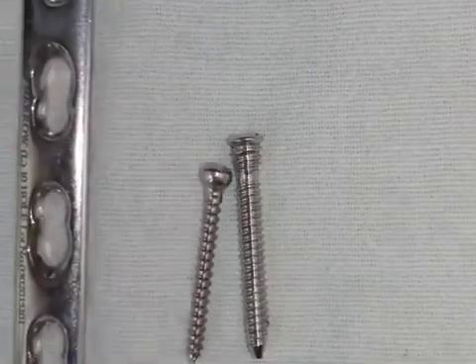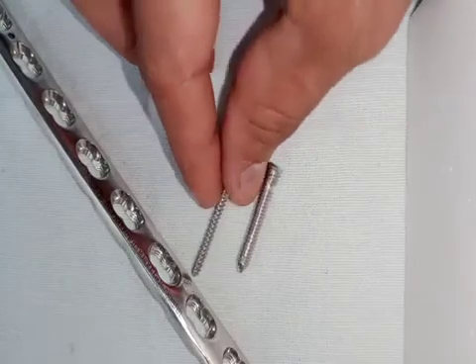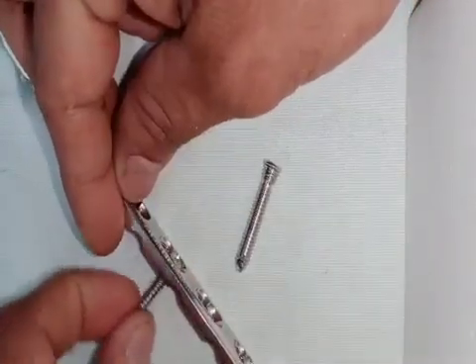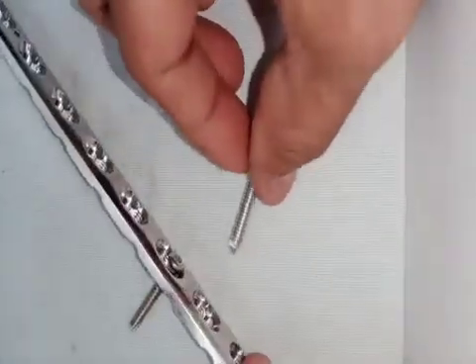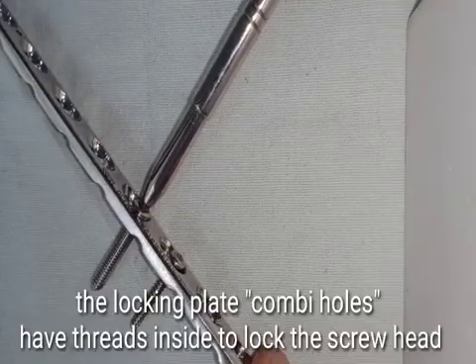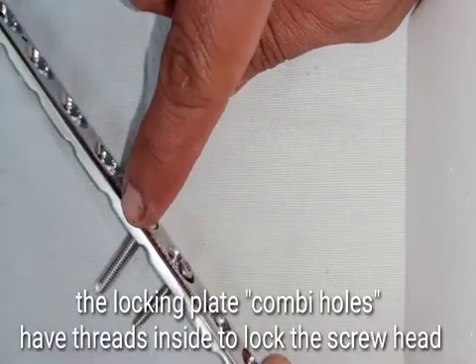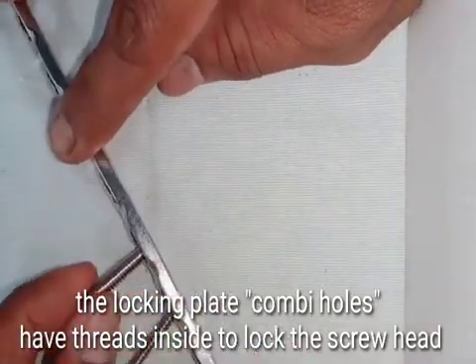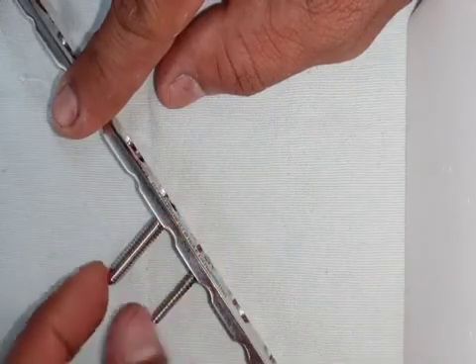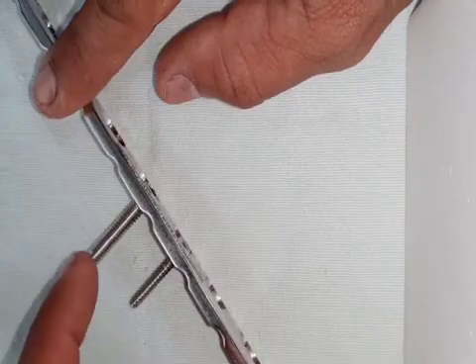The locking screw is used in a special type of plate called the locking plate. Let us see what happens when an ordinary screw is inserted into a standard hole of this plate — you can see that the screw is easily mobile. But when we insert the locking screw into the special locking hole and screw it in, the threads on the screw engage with the threads inside the plate, and there is no movement at all. The threads of the screw lock with the threads inside the plate to give a very stable construct, whereas the ordinary screw just moves about.